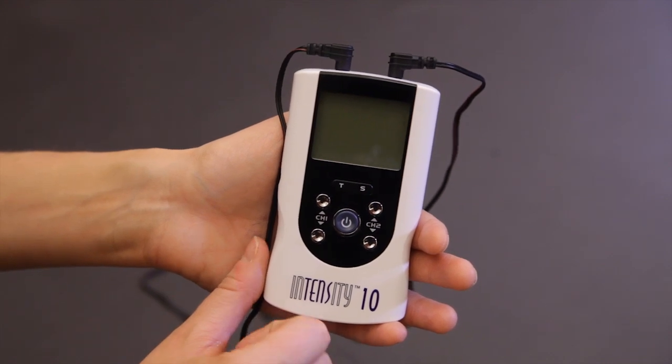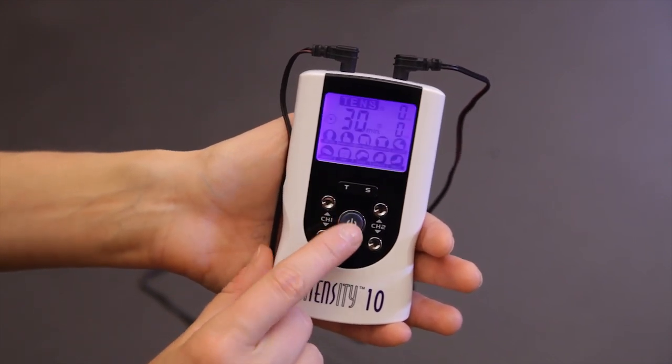Identify and press the on-off button to turn on the unit. The screen will light up when it's on.